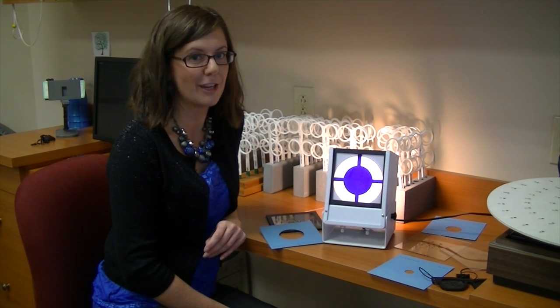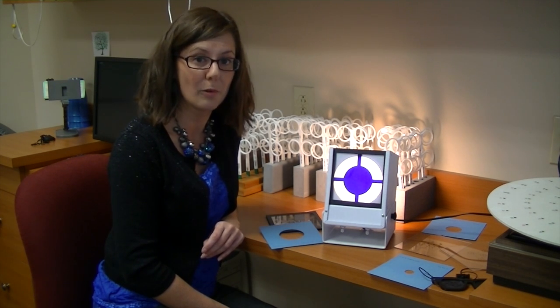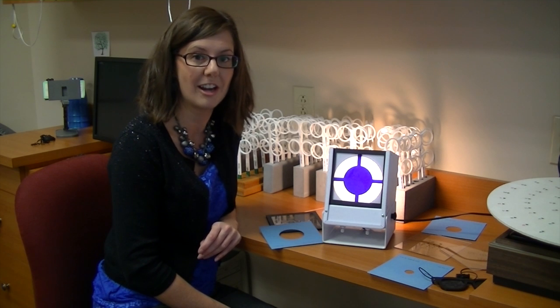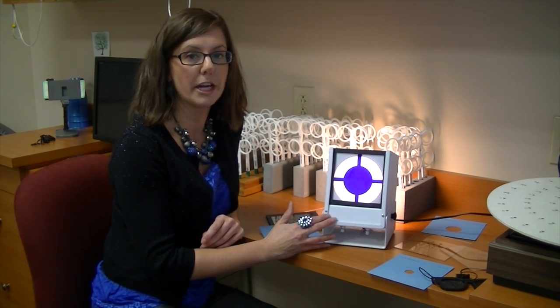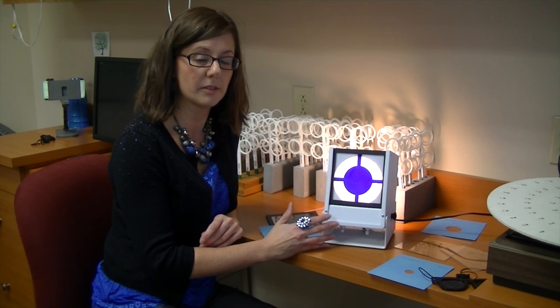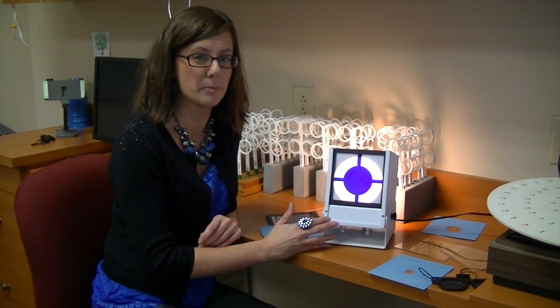It's what allows us to see something like a 20-20 image or a 20-40 or 20-60, which you hear from your eye doctor. And so with this particular item, what we're doing is we're training the person's ability to be able to see something more clearly with that specific spot at the back of the retina.